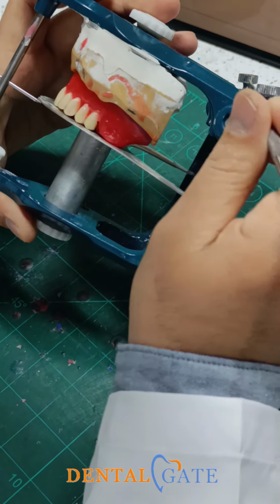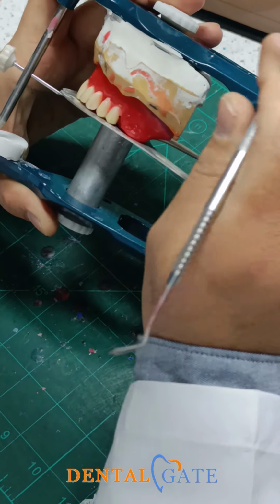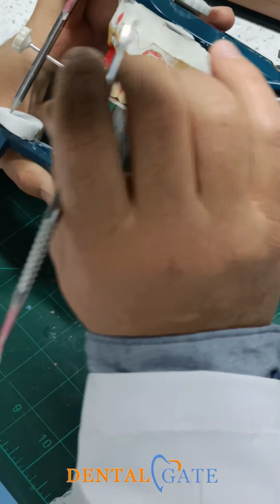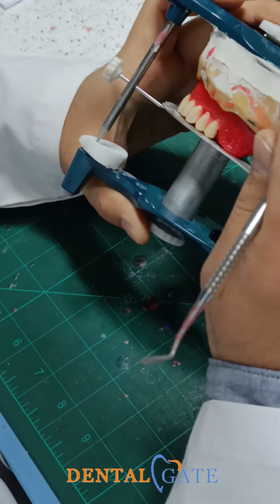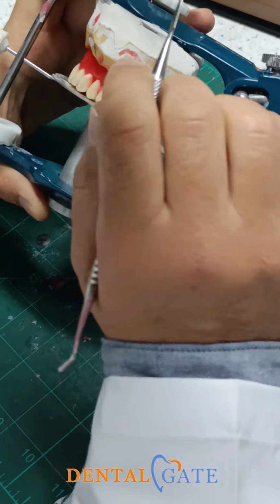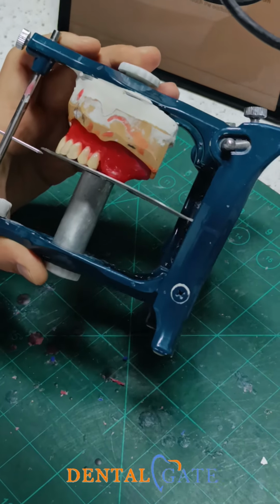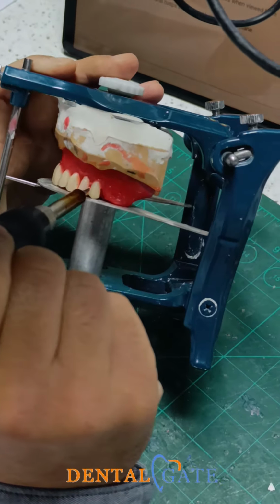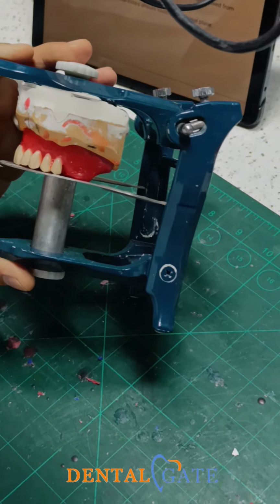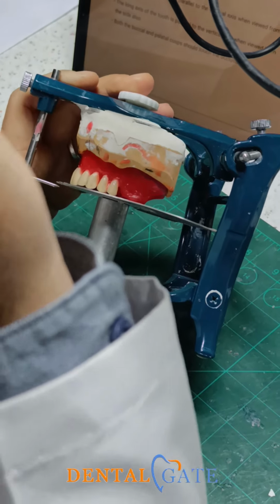Because for your practice, regardless of the scientific principles, if we follow these criteria, the lower teeth will easily make intercuspation. If you don't follow these criteria, there is no way to make intercuspation with the lower. Okay? So these criteria in our practice will assist the intercuspation.